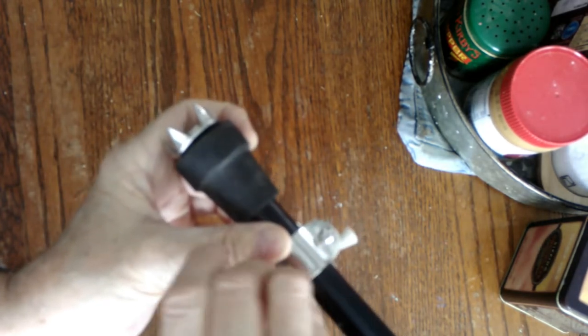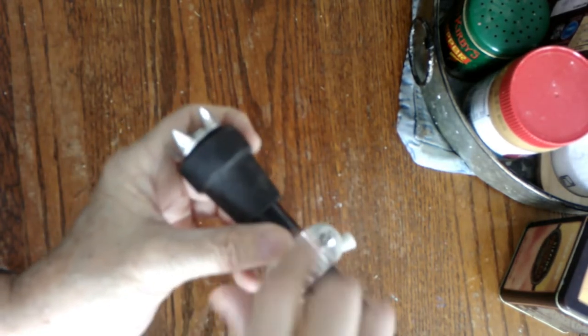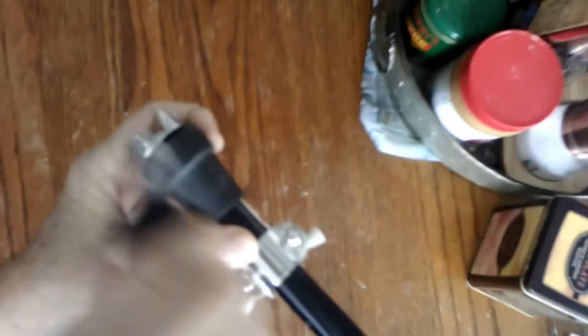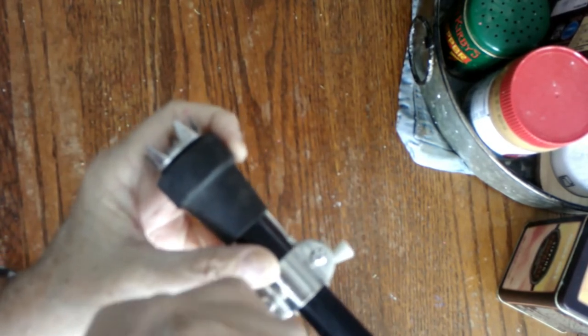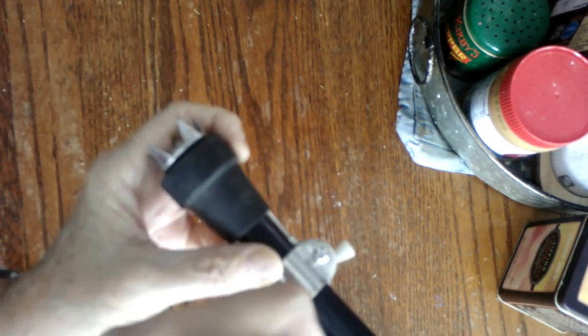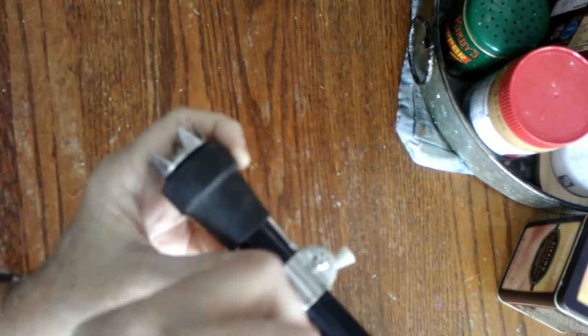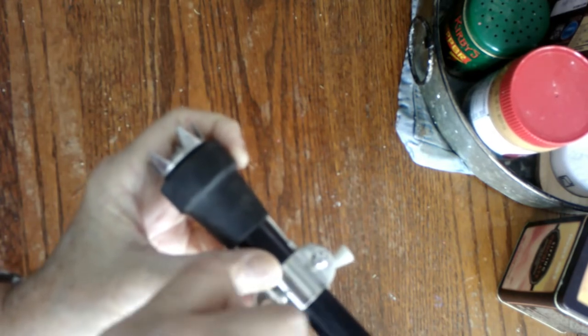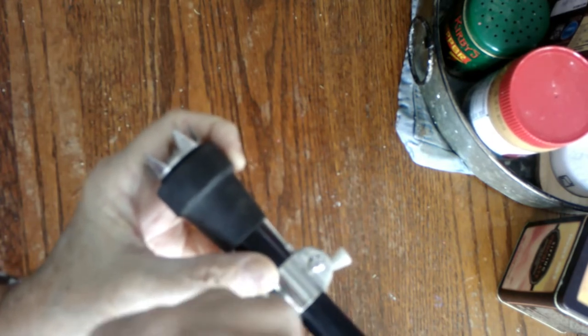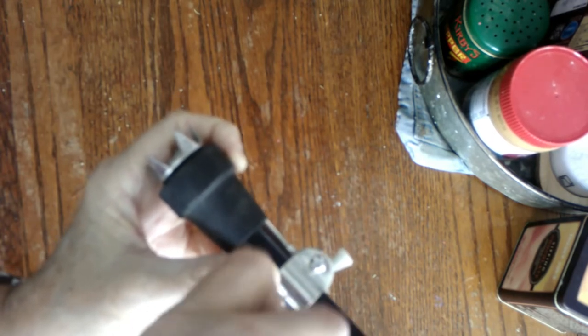Screw it in with a Swiss army knife or screwdriver if you want to use a proper tool. Snug that up good. Of course, don't have to break or bend anything, just get it on there because the pressure of your cane will help operate it.